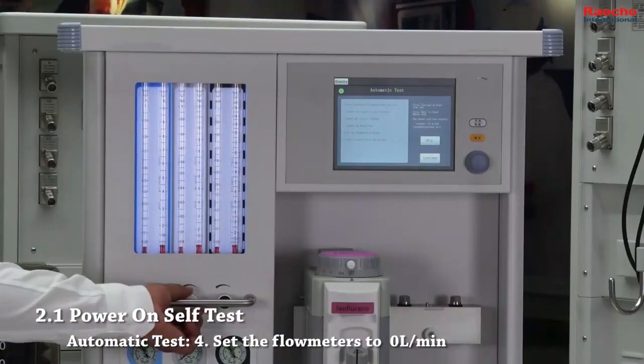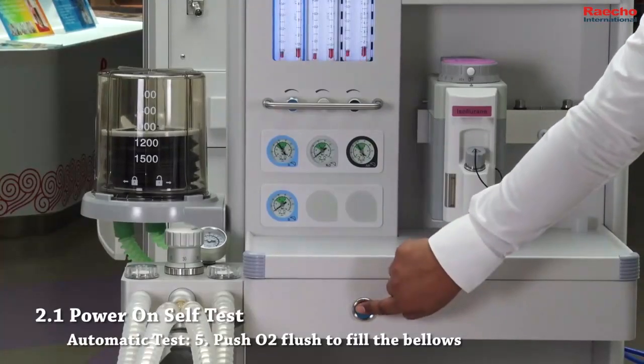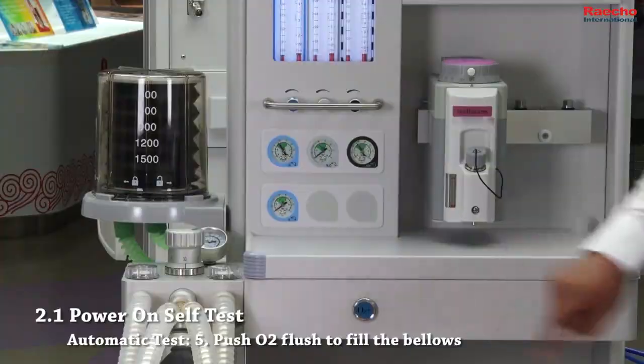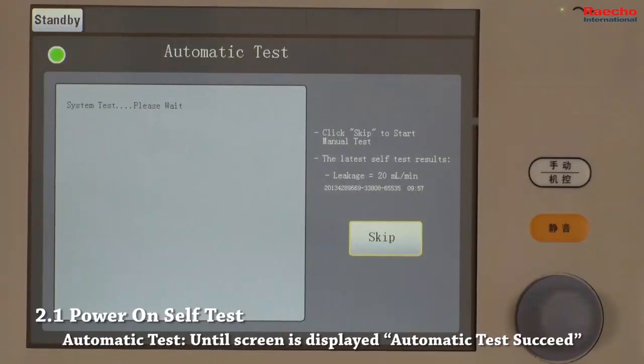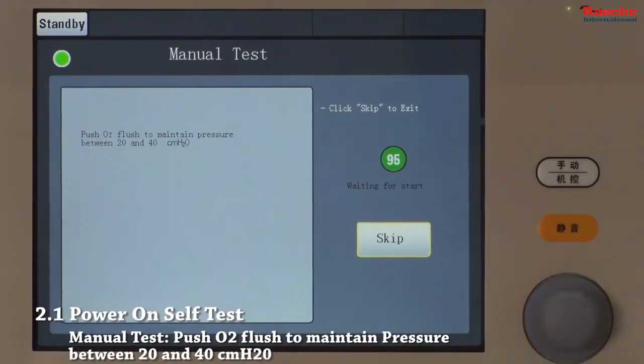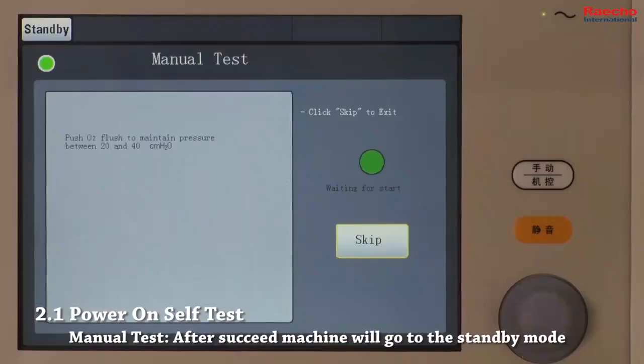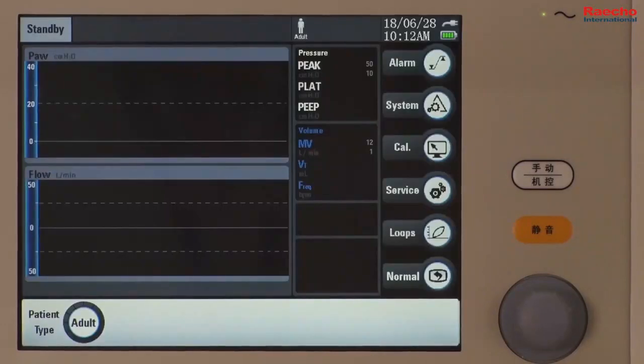Step 4. Set all flow meters to 0 liters per minute. Step 5. Push O2 flush button to fill the bellows. Press continue and wait for about 30 seconds until automatic test succeed is displayed on the screen. Press continue to go to manual test. Follow instructions displayed on the screen and push O2 flush button to maintain pressure between 20 and 40 centimeters H2O. After the manual test is passed, the machine will go to the standby mode.